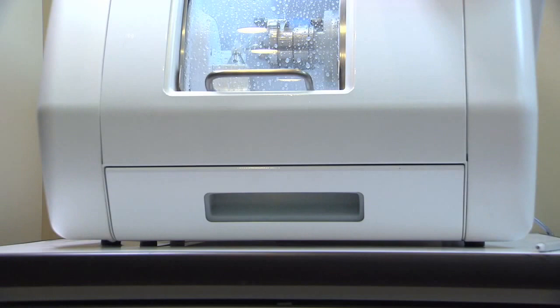Finally, check the coolant level in the drawer reservoir. The coolant level should be no lower than the middle of the viewing window. We recommend that the coolant be exchanged and the filter and coolant drawer rinsed out approximately once a week.